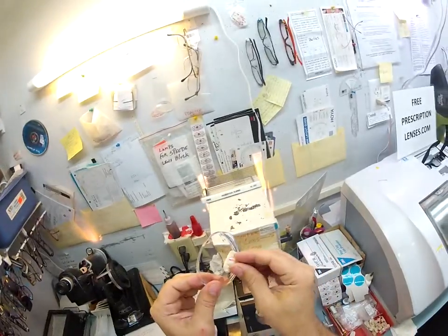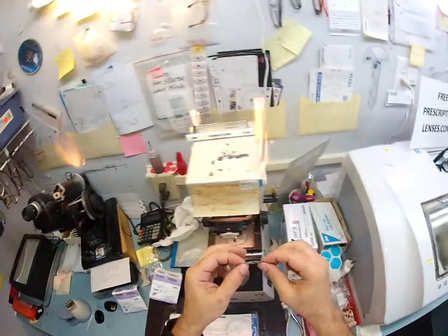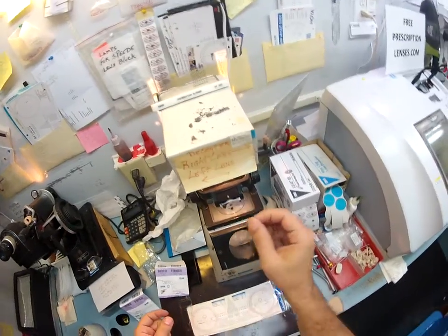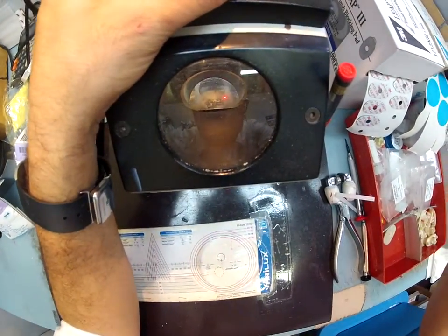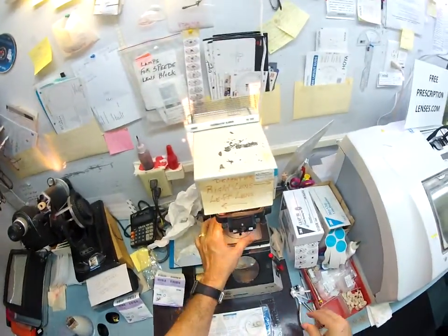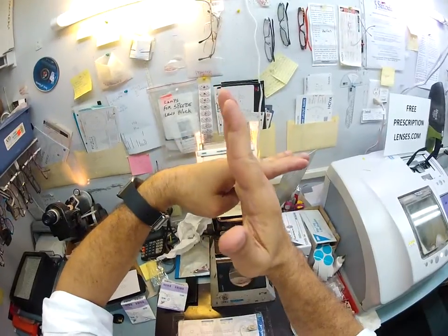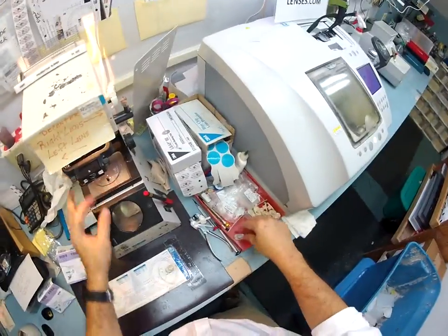I need to attach this block to the lens — this is what's going to hold it in place in the lathe while it's cutting. I'm going to use my little double-sided adhesive sticker. The black side is the sticky side. Stick that on there, pull away the tape, making it a double-sided sticky pad. These are available from 3M, the same people who make the post-it notes. If you can imagine the crosshairs of a scope — the vertical meridian and the horizontal meridian — I'm lining up your optical center so your red dot is dead center on the crosshairs.